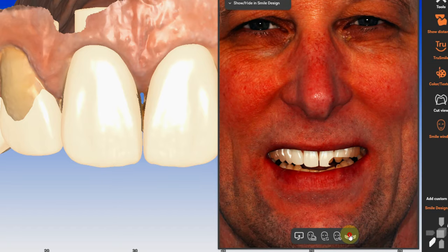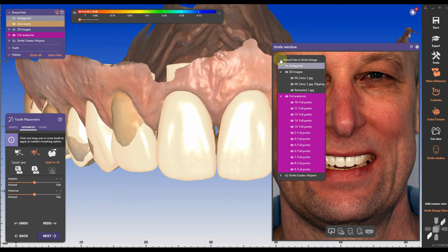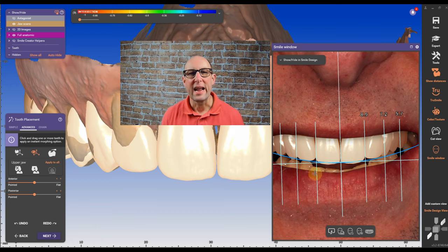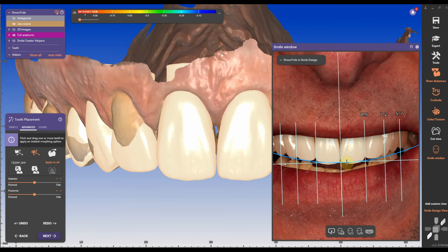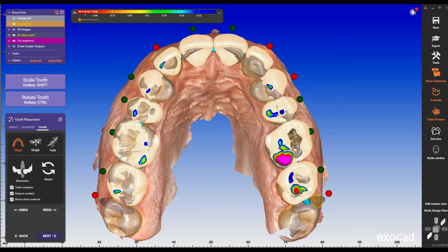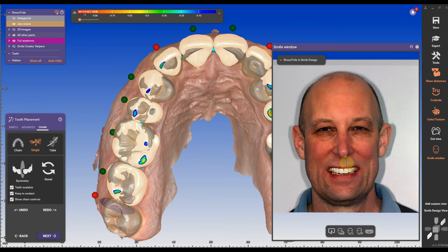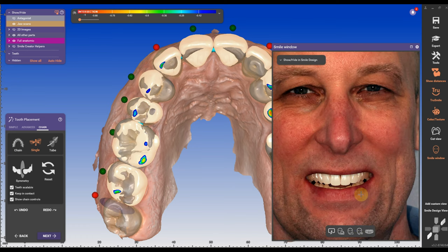When I'm opening up the smile window, I can get a good preview of how my smile is gonna look. I can bring in certain guidelines or change the teeth to an outline or natural shape. I can see that my buccal corridor on the left side is a little bit collapsed, so I'm gonna bring out the left side a little bit more to fill up the buccal corridor.